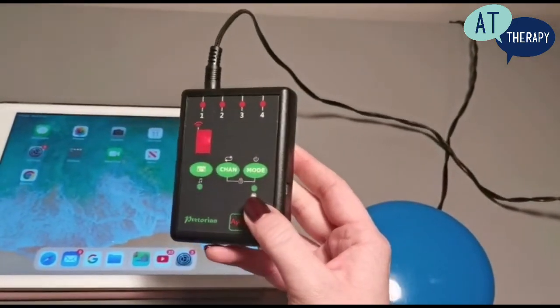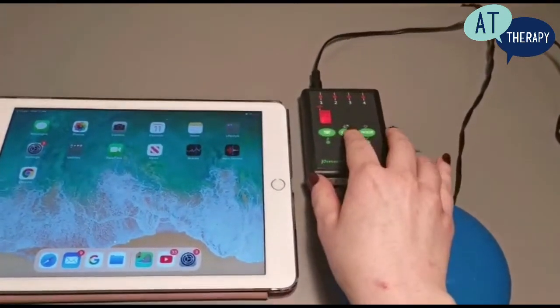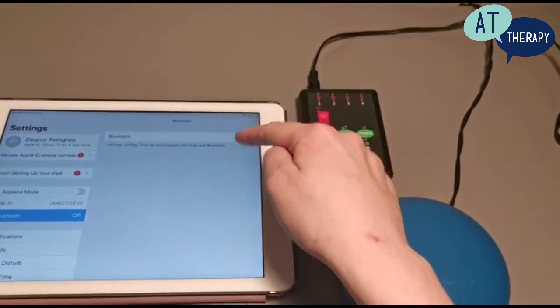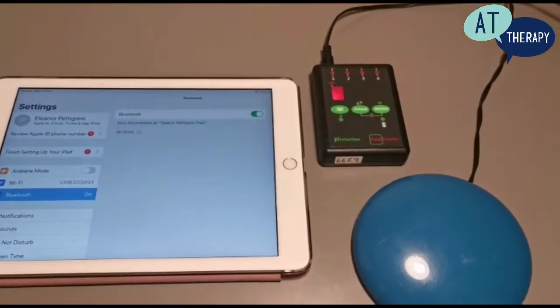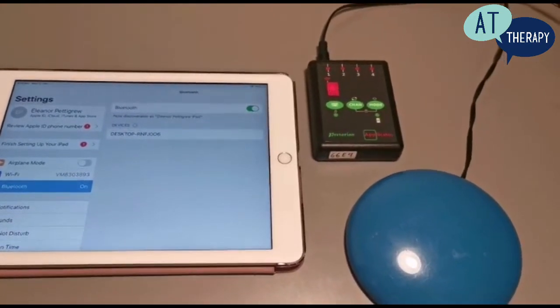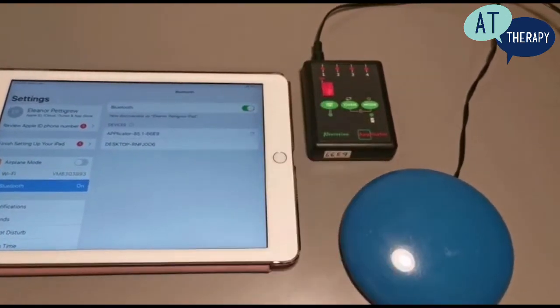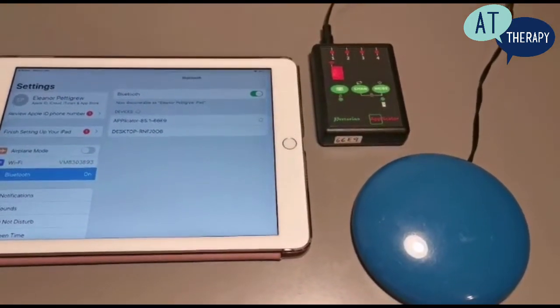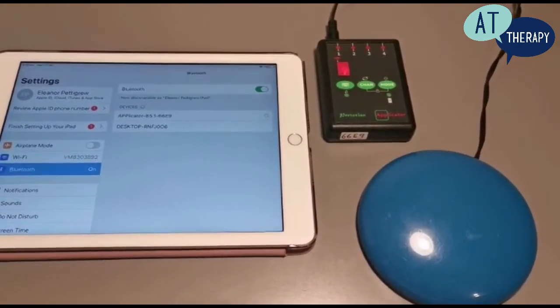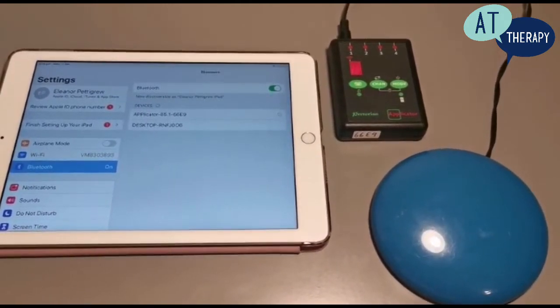The green light above the battery icon will light up green when it is plugged in and charging. So we are going to go into our settings on the iPad and turn the Bluetooth on. You can see the red circle going round on the applicator showing that it is searching for a Bluetooth device. When it comes up we are going to select it under our devices on the iPad. If you have already used the applicator before, it should already come up under your devices.